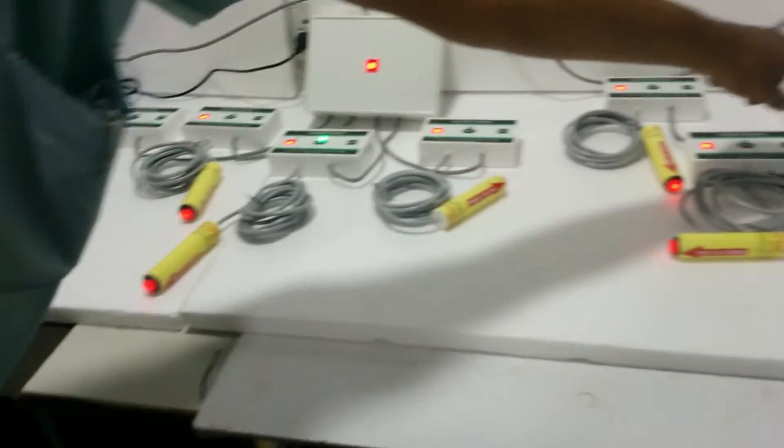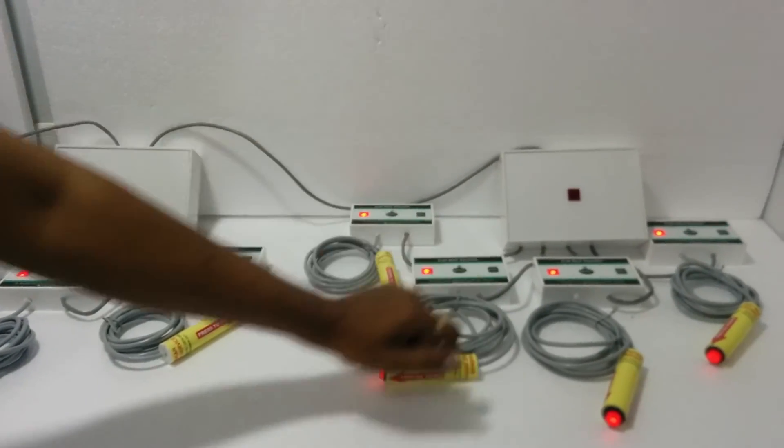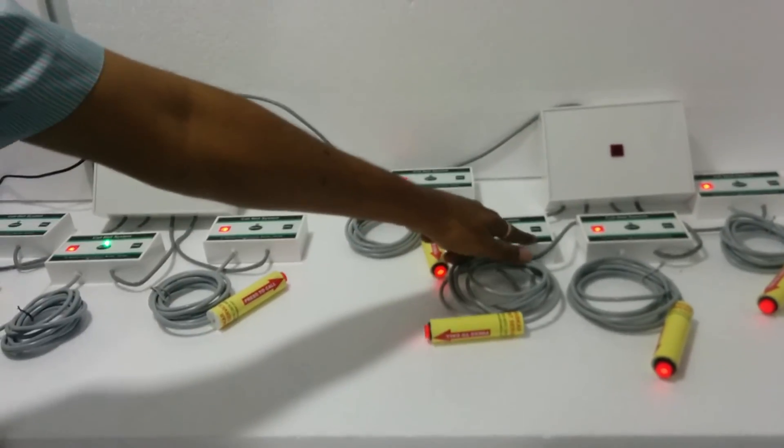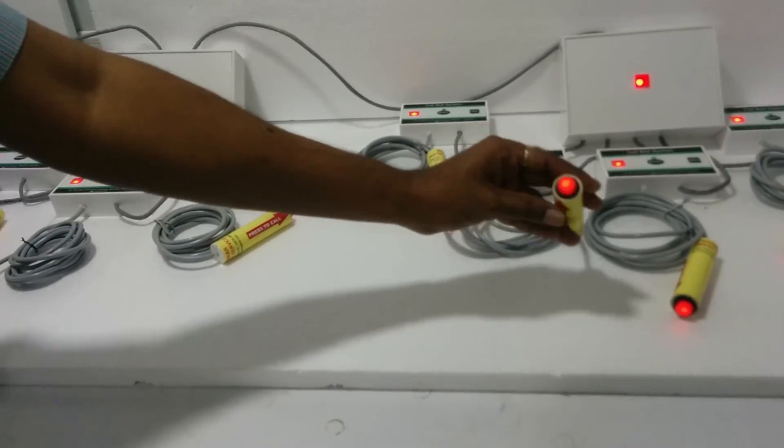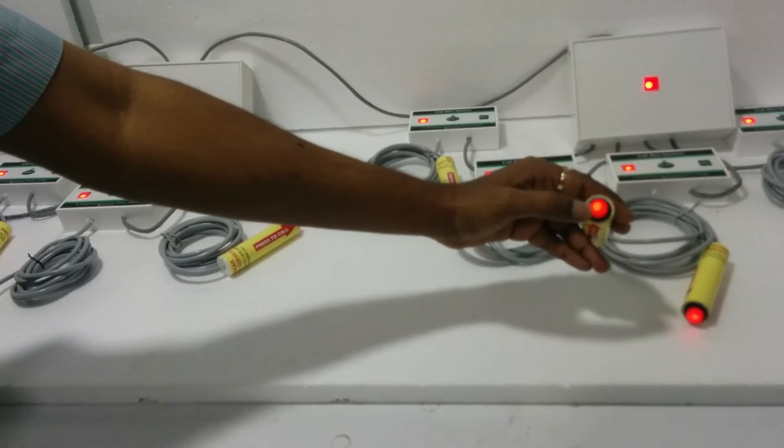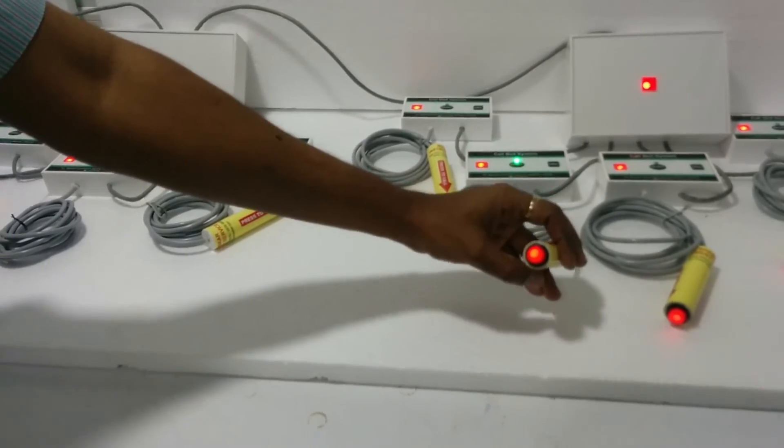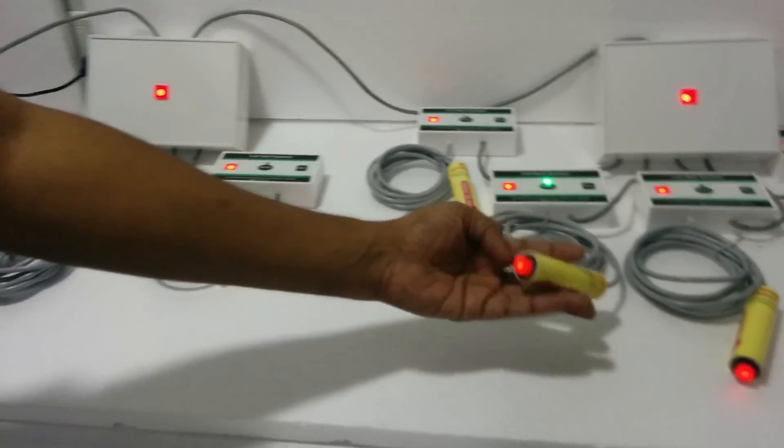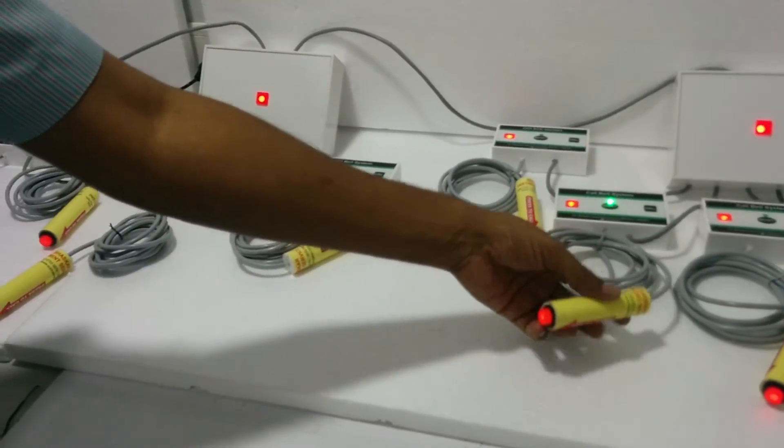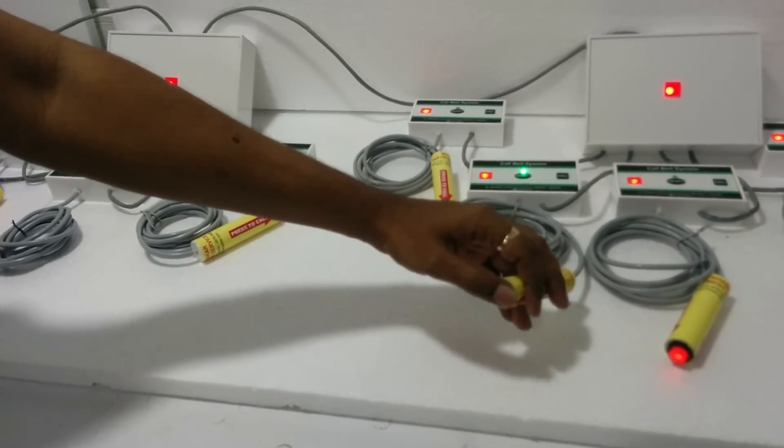This is another panel. You can call from this switch also. And this is a pendant switch. There is a light that glows permanently, so you can find it in dark areas when there is no light outside.